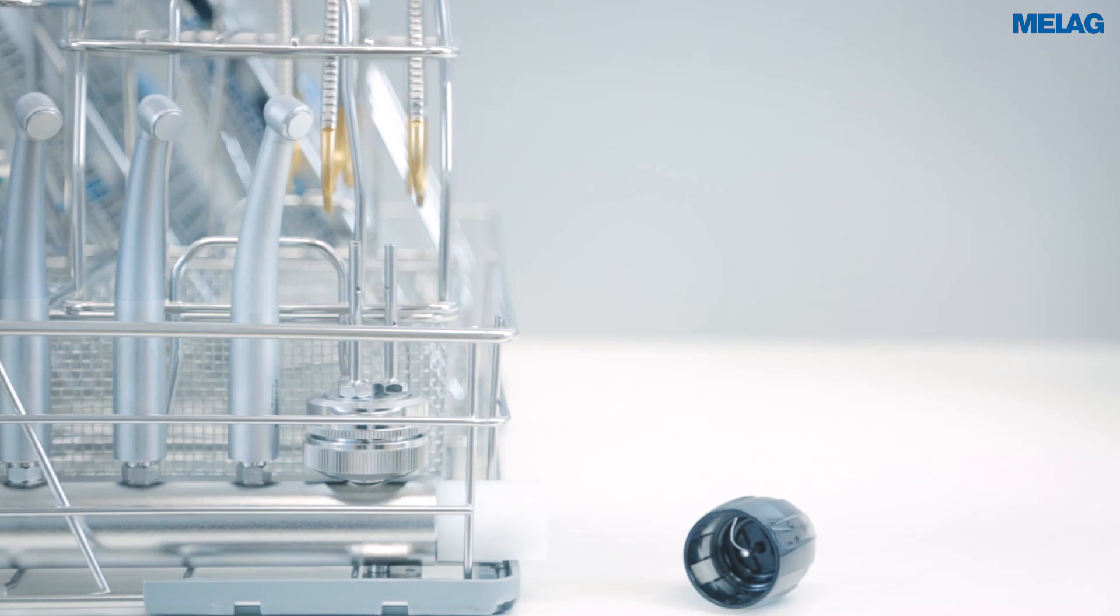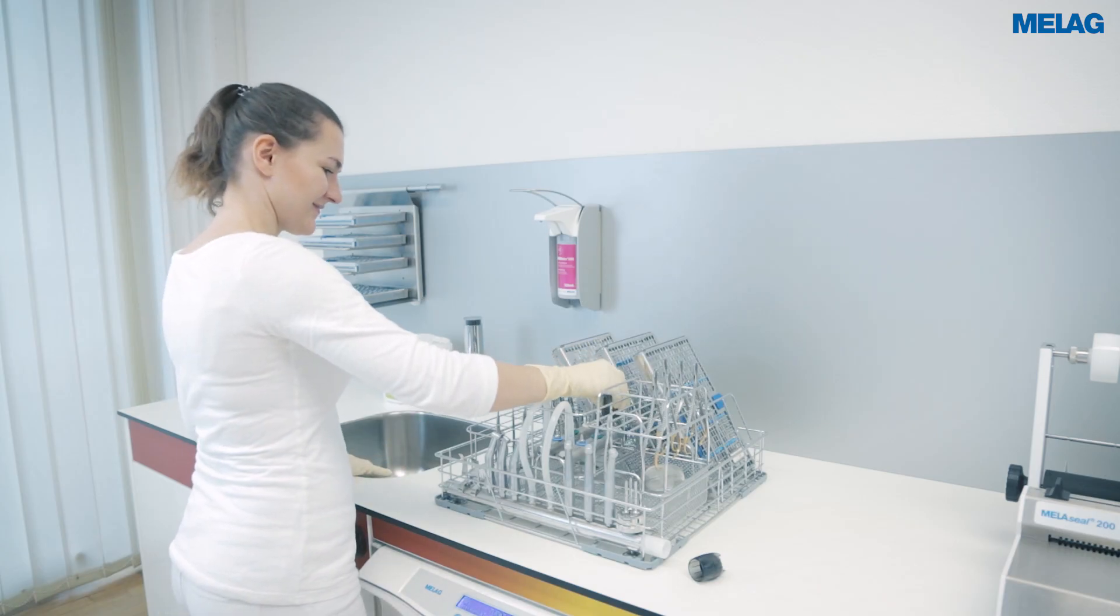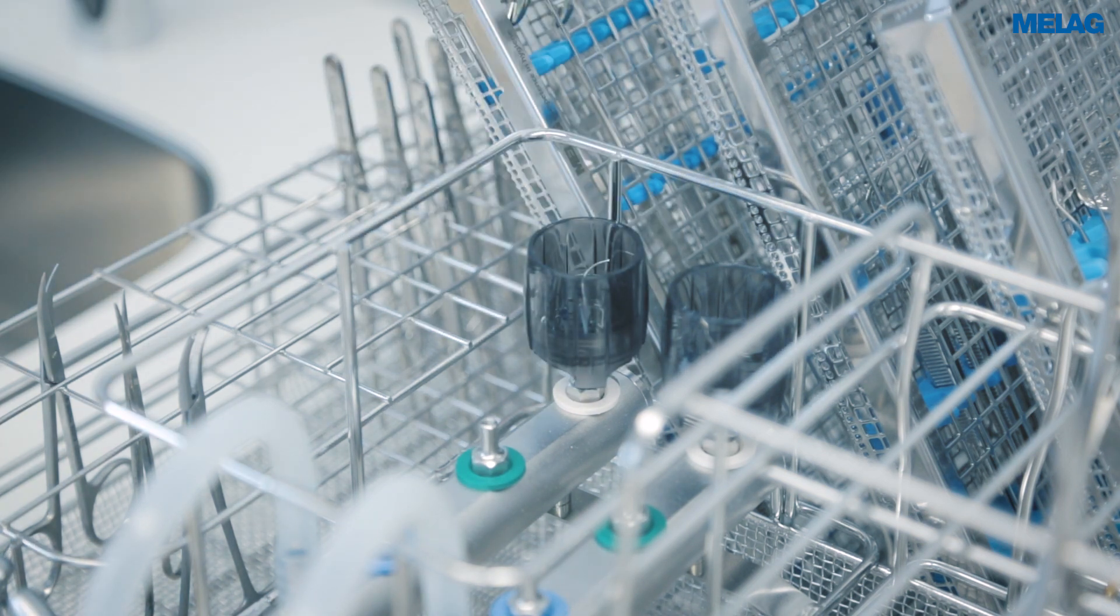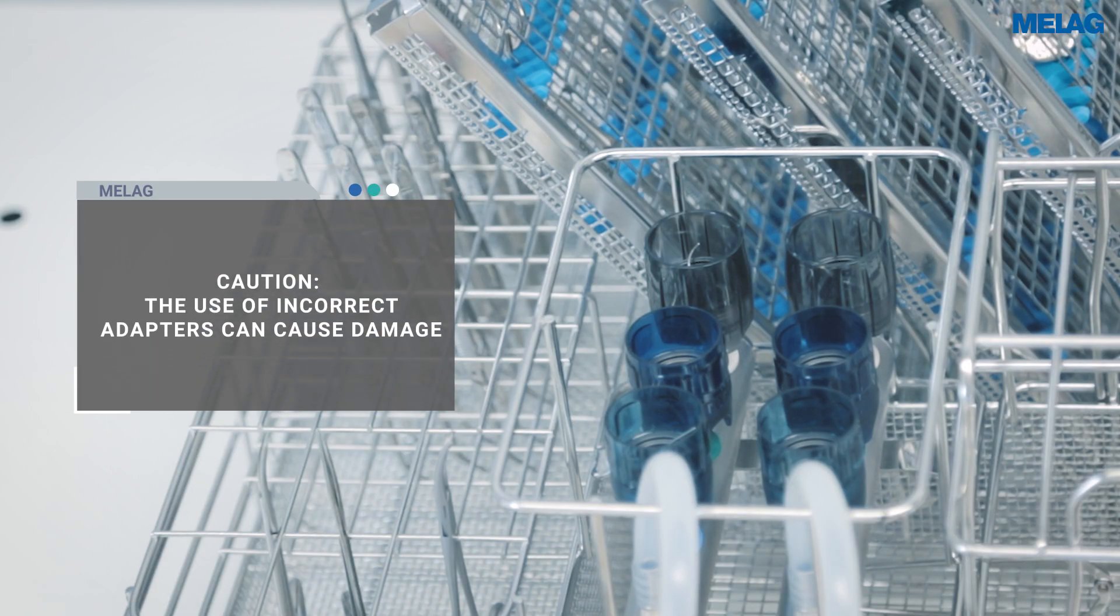You can connect ultrasonic scaler tips safely using the torque wrench. The injector basket Flex1 provides a space-saving solution for the decontamination of six ultrasonic scaler tips. The colored marking facilitates the assignment of the ultrasonic scaler tips.